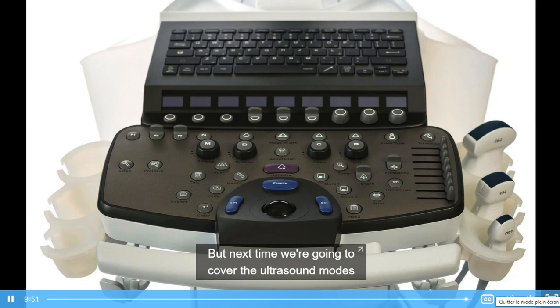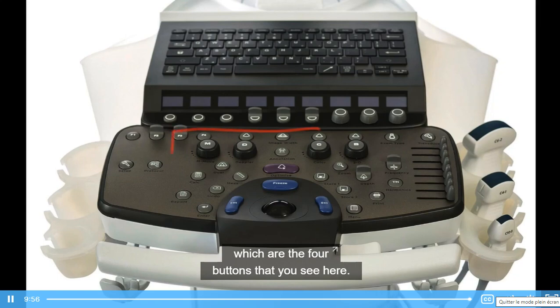But next time we're going to cover the ultrasound modes, which are the 4 buttons that you see here.